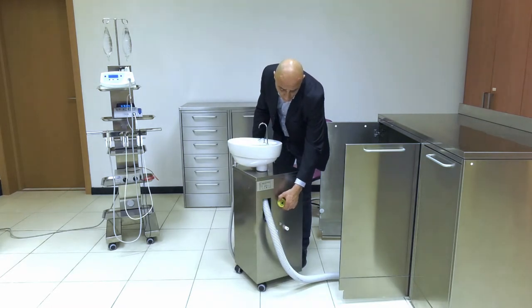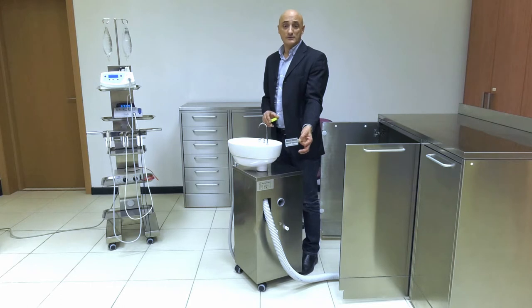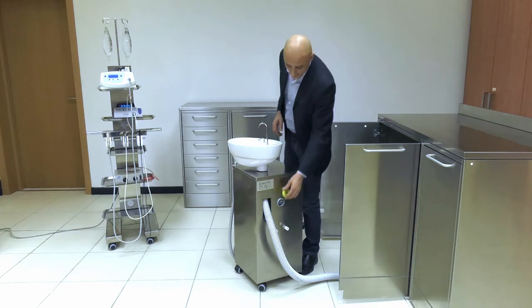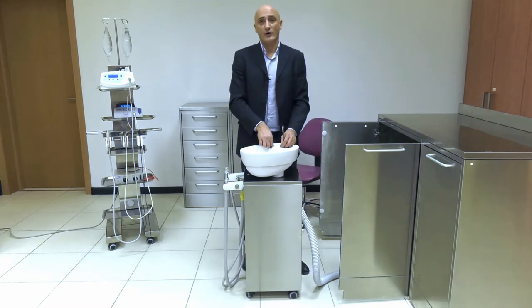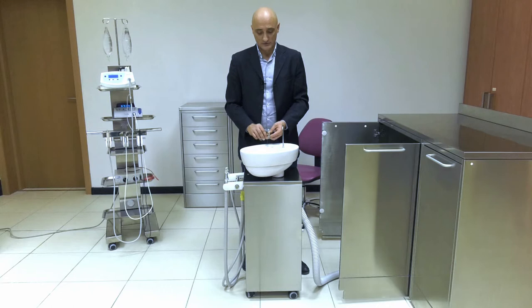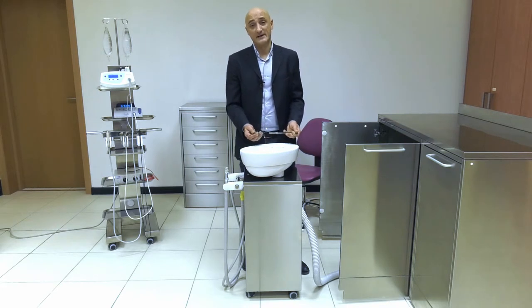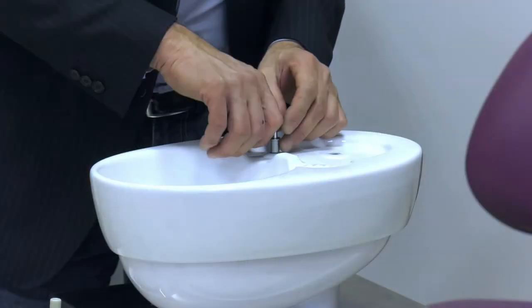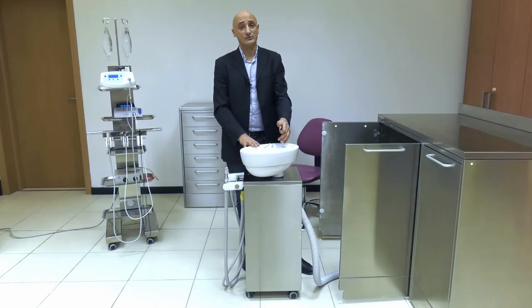As concerns cleaning the collection tray located by the valve under the cuspidor, the gasket must be properly lubricated, as must the O-rings on the cuspidor nozzle and the cup nozzle. When you sterilize — once you bag them and prior to fitting them back — O-rings must be properly lubricated. The key characteristic of our Aspirol cart is that it can fit inside the cabinet.